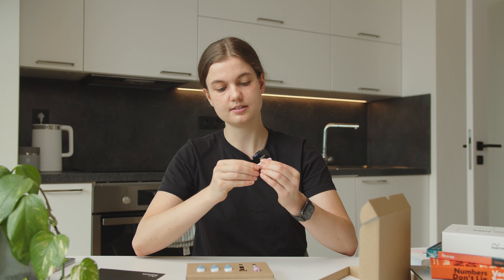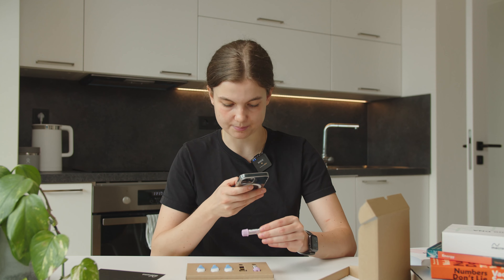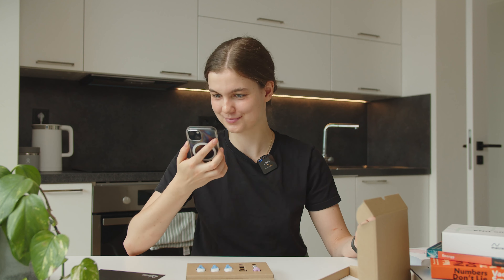First, we are going to register the sample in the Macromo mobile app — this is the production version. I have my Macromo DNA Platinum results here, and in the same health tab I'm just going to scan. Then we have a short questionnaire, and here the test is registered. Amazing — we don't need our phone anymore.